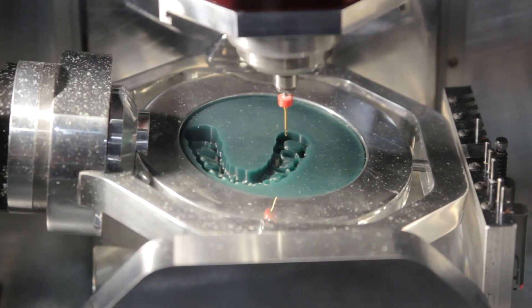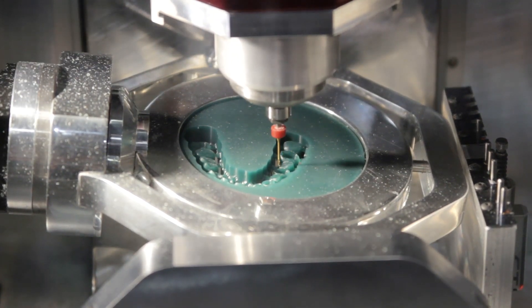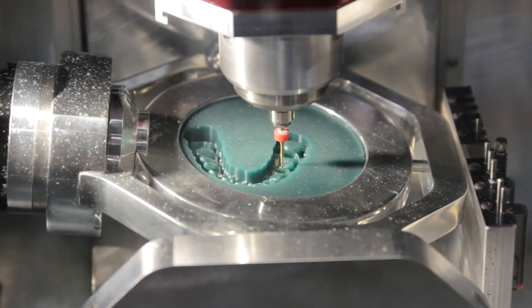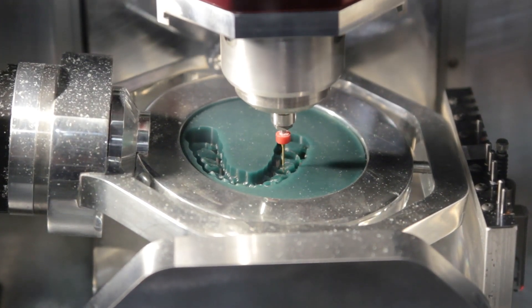Digital Dental Labs uses the Power Panel 65 for the full five-axis CNC control of the machine. They use micro-stepping steppers, which provide the smooth motion of a servo system without the high cost associated.